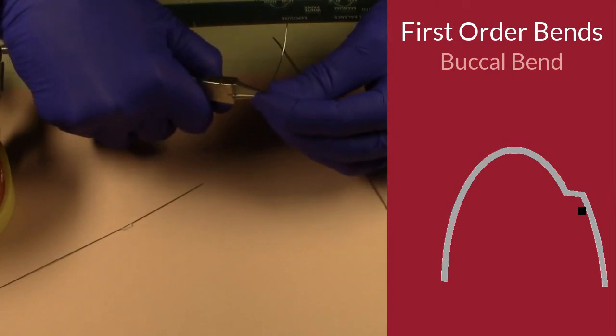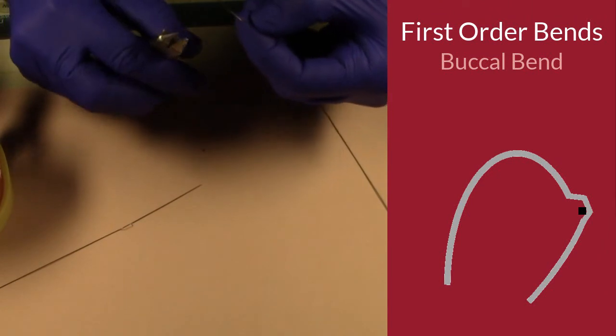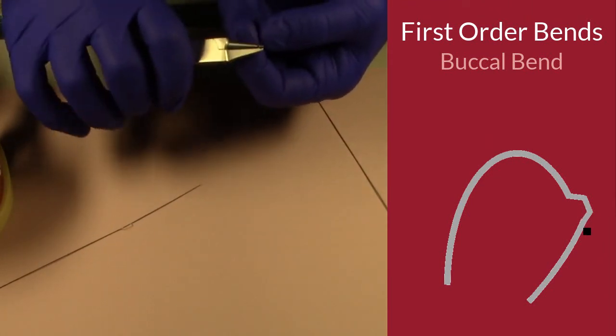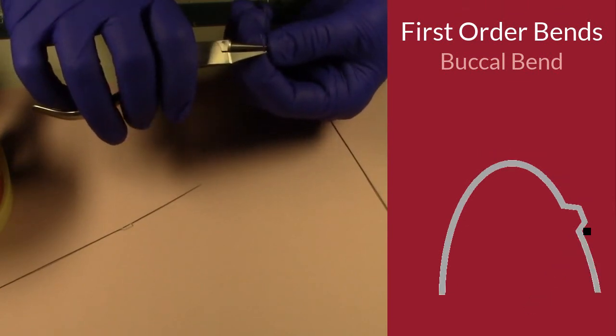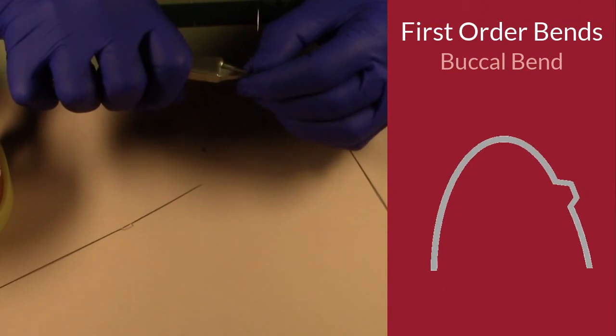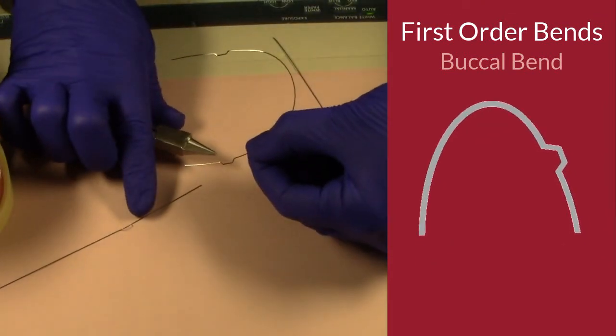bring it back to make that second table leg, so to speak, at 45 degrees, and then bring it back in to the same plane as it was before, in the same overall form as it was before. And there you go. That's the buccal bend.